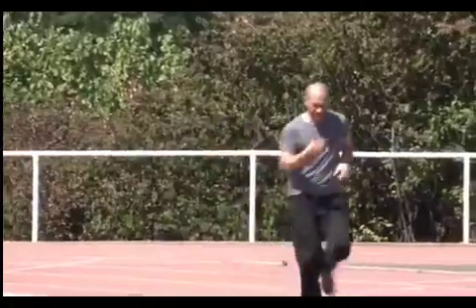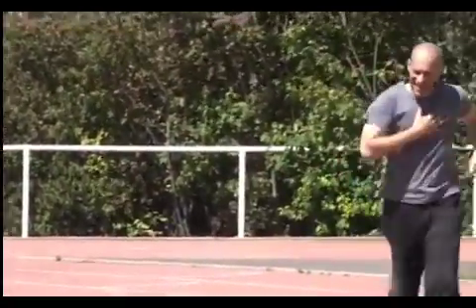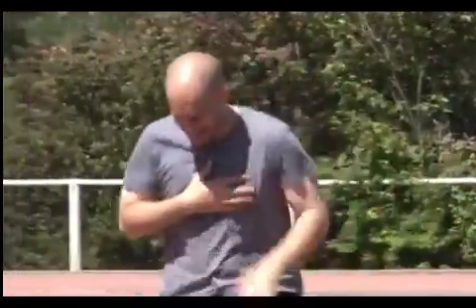In this video, you are going to learn how to use a defibrillator in the event of someone suffering a cardiac arrest.